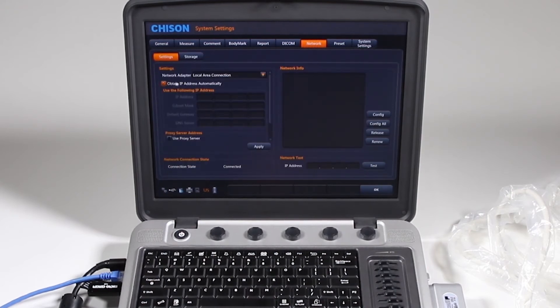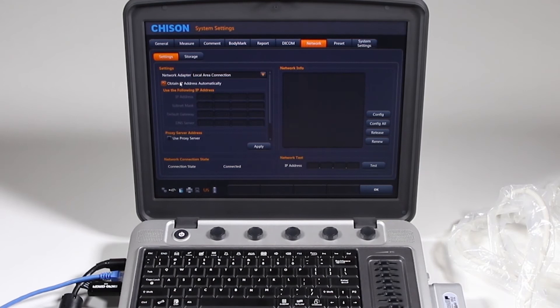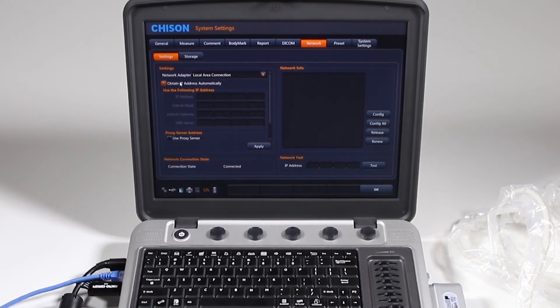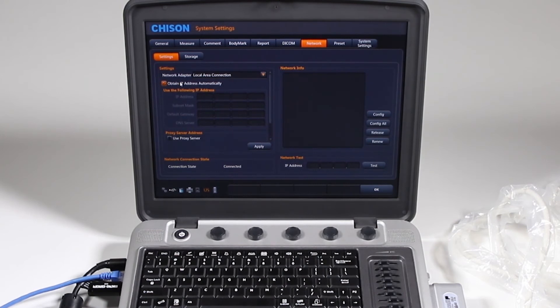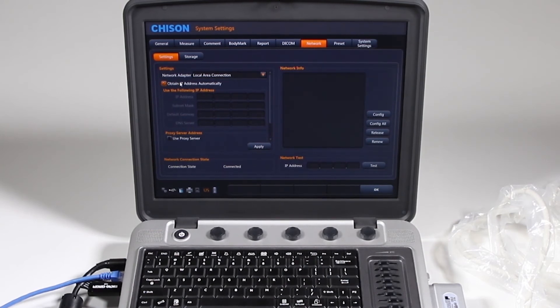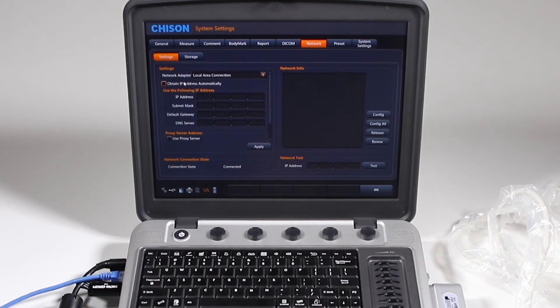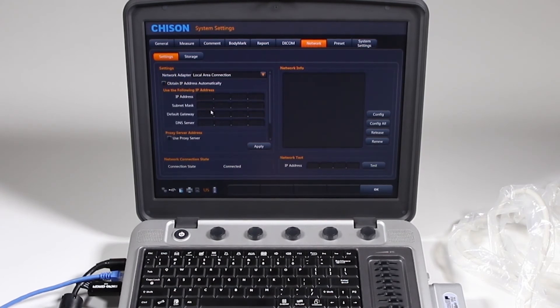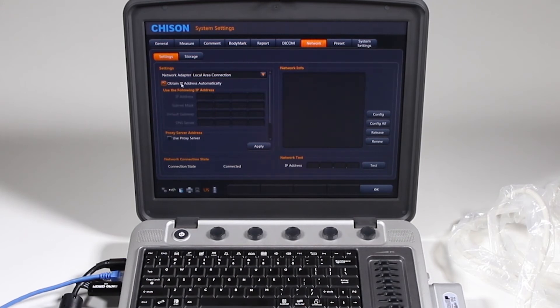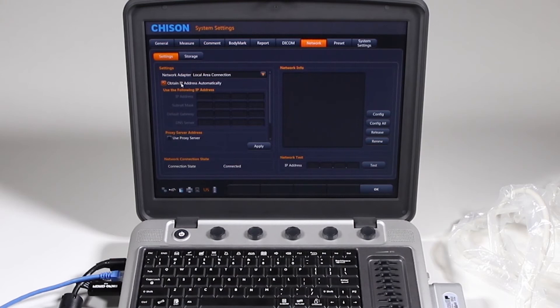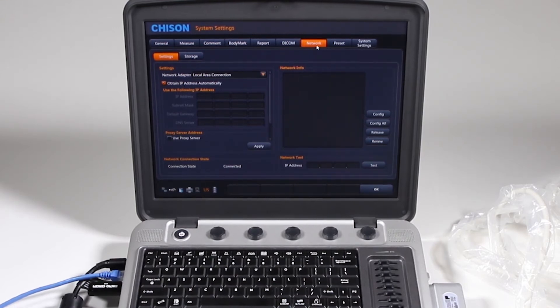Mine has something called DHCP. You have to talk to your IT department to find out if you use DHCP or static IP address. Just send them a picture of this information and say, I need this, and you need to know if it's an IP address automatically, or if you need this specific information. Only they can give you this information. Nobody else can. You have to contact them and find out what this is. So you won't be able to connect to your network without this.